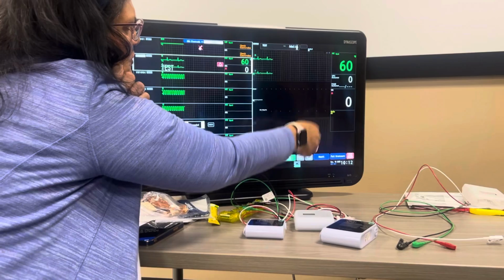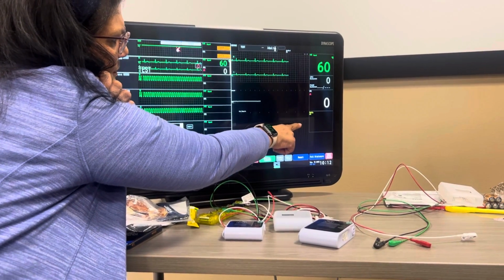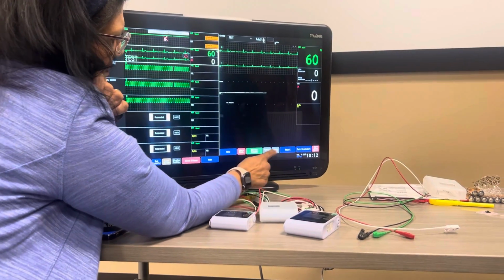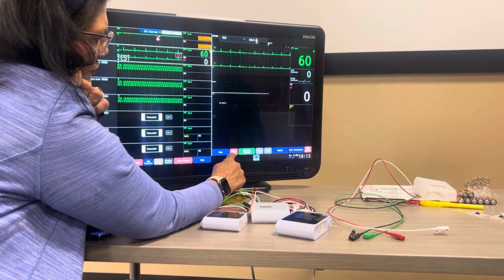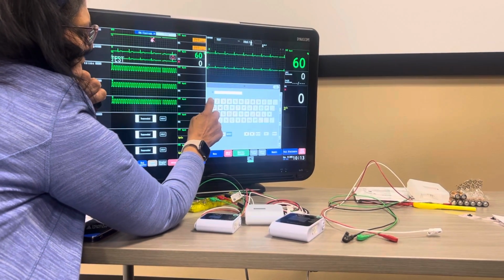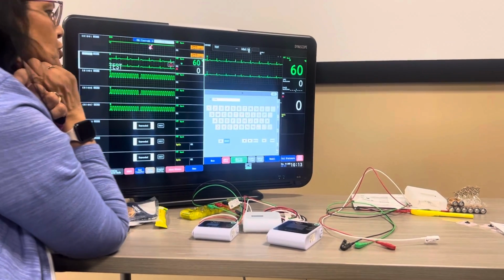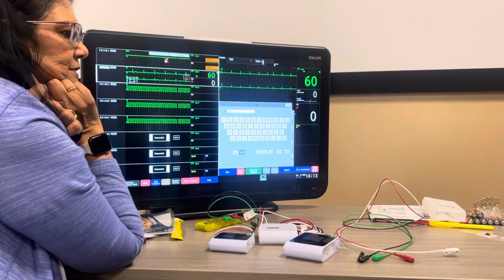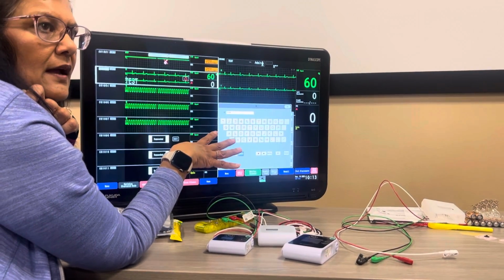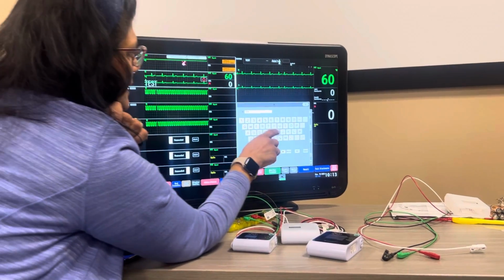So here's the patient. My heart rate, VPC or PVCs will show, their respiratory and SpO2 if you have that hooked up. Down here is the menu for this patient. So we're going to go to admit discharge. You're going to place the ID in there. I don't know what you guys are using. I'm just going to say 1, 2, 3, 4. Make sure you place it in there because the physicians are going to be able to see this from home, and they're going to have to have an identifier, and that's going to be the ID, okay?